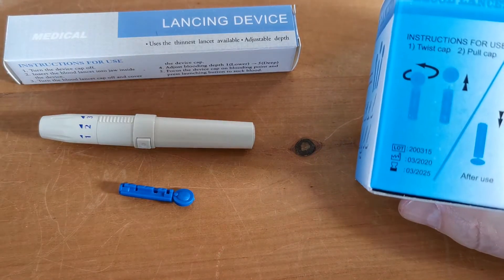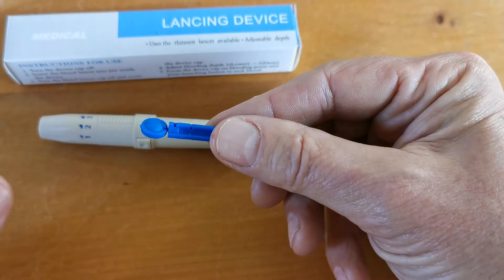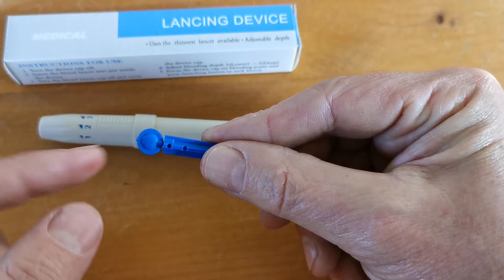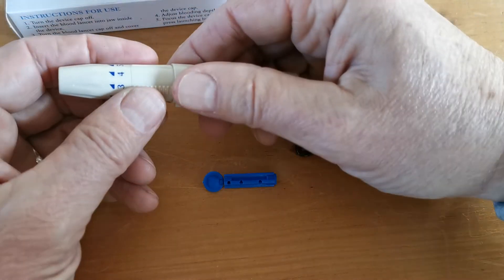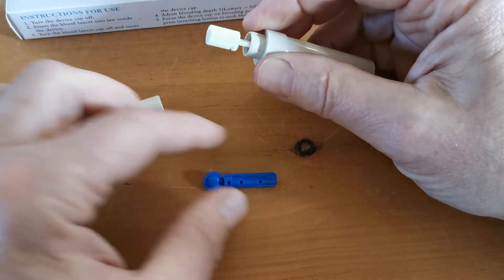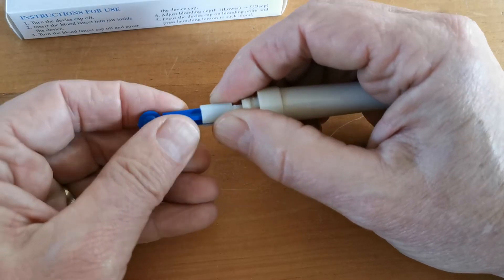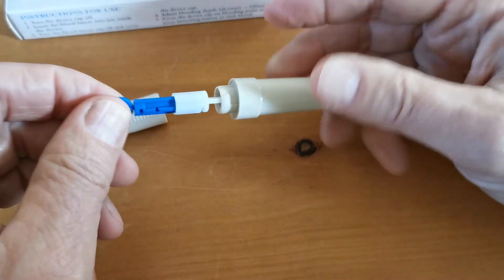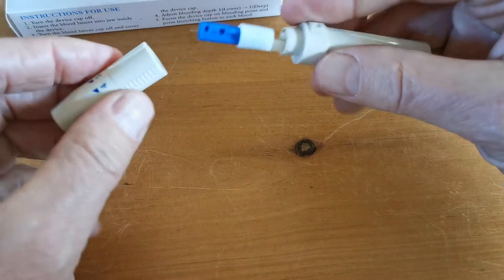They're single-use blood lancets. This is one of them — this is what they look like outside the packet, and the sterile part is under this removable cover. Now the eFast lancing device is a very nice, robust lancing device. It's got a beautiful locking system. The lance fits really nicely and firmly into that holder, and then you simply twist off the cover. There's your sterile tip lance.